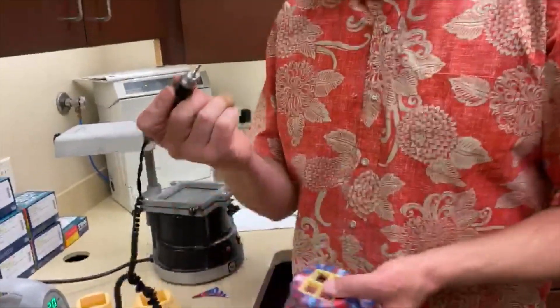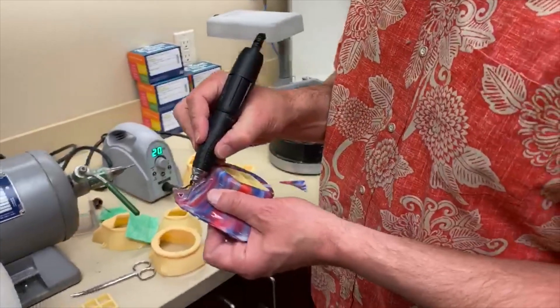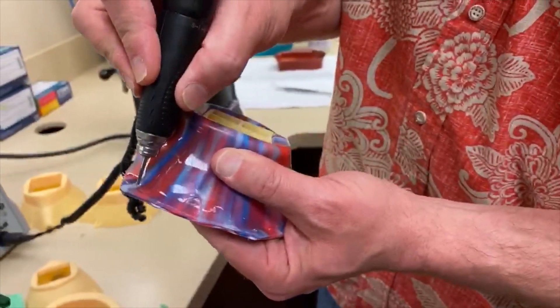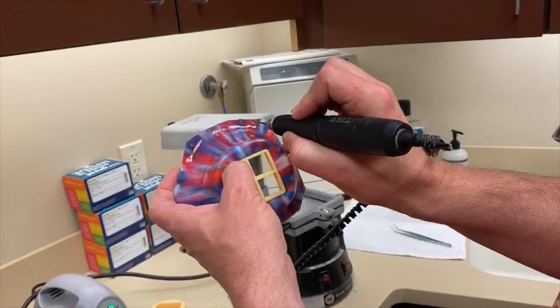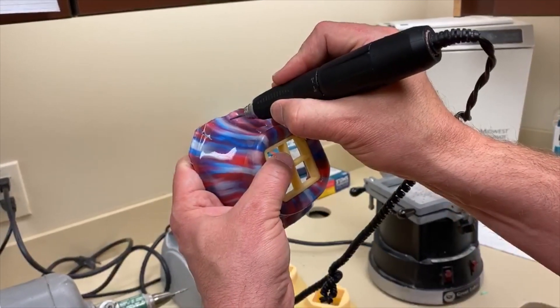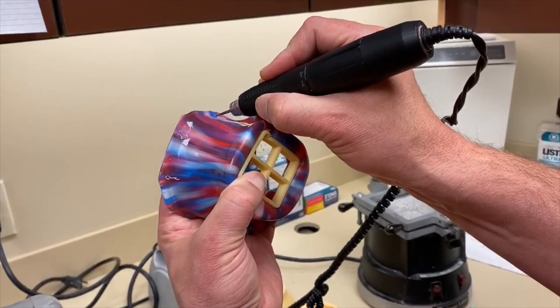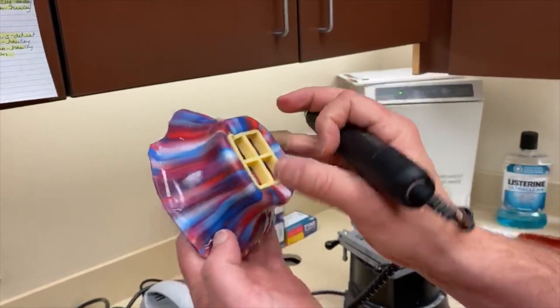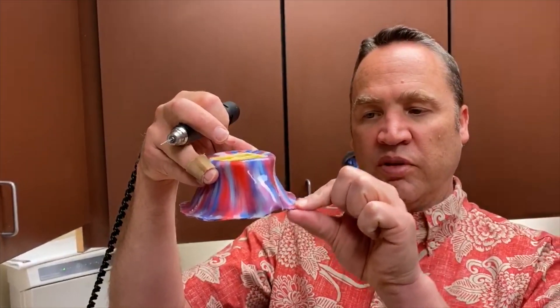The other thing you have to do is attach it to your face. We take a Dremel tool and poke three holes in this, because everybody's face is a little different and we want it to seal. I've poked three holes along this edge and I'm going to poke three holes on the other side. If you don't have a Dremel, a leather awl would work — you just need a hole big enough to thread something through. You want it on the flat part so when it pulls against your face it'll seal the mask.